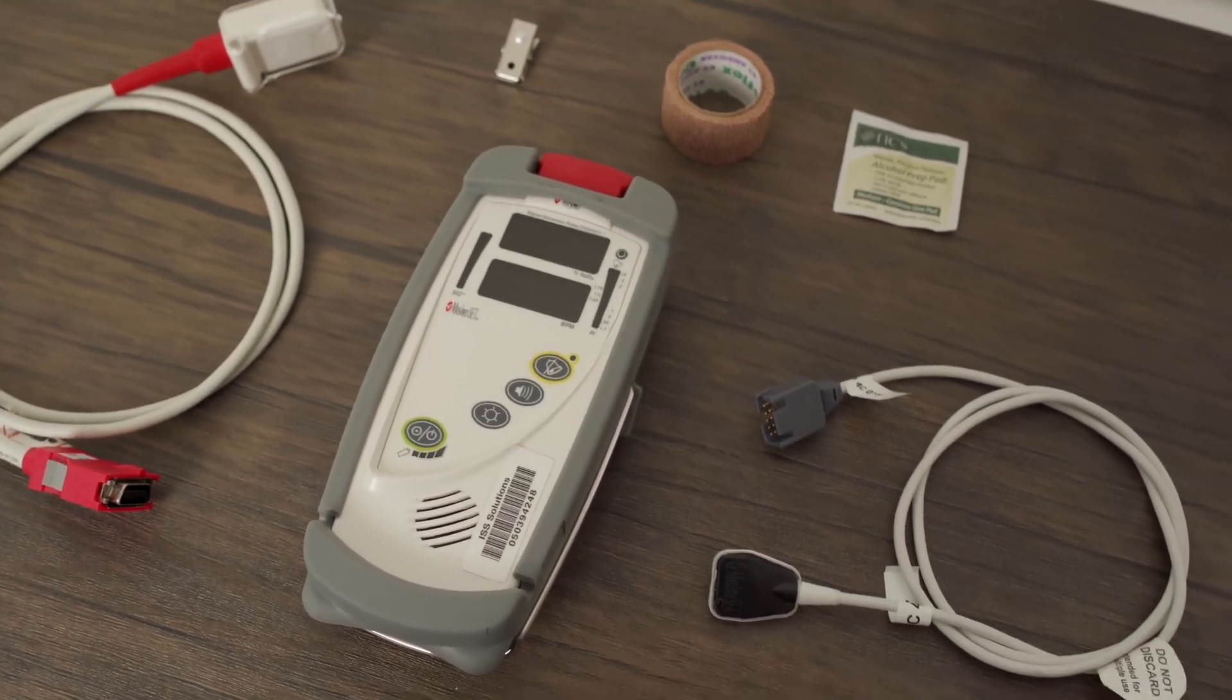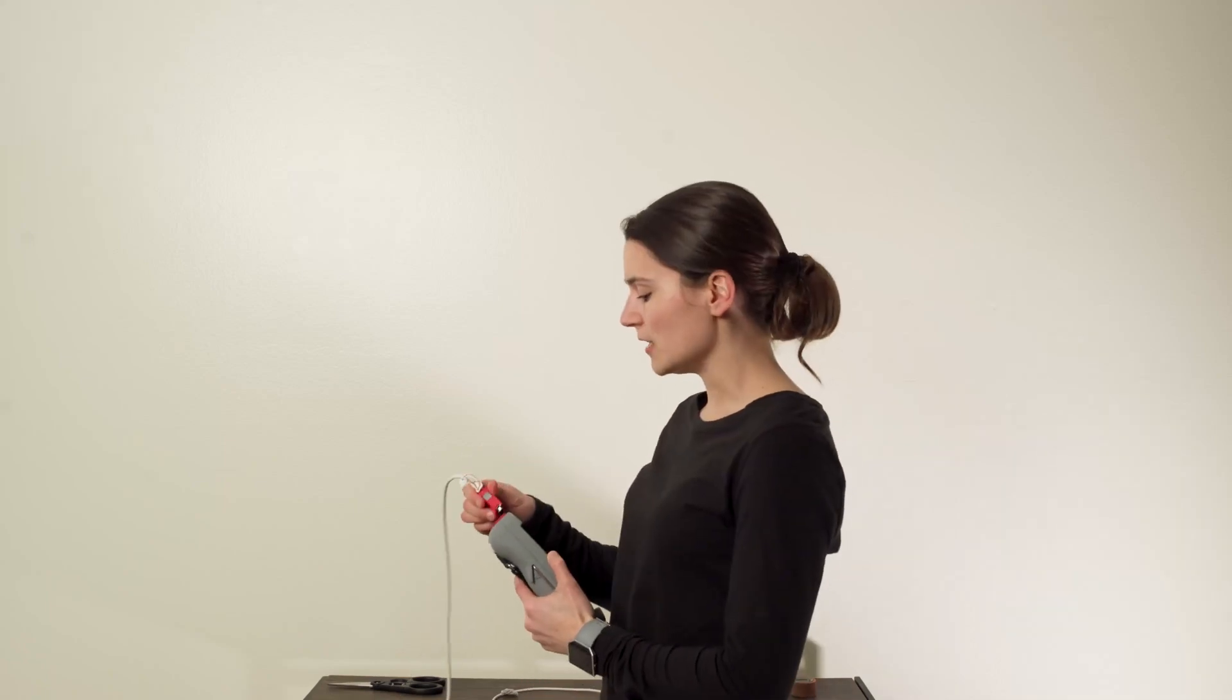First, I'll demonstrate how to set up the equipment. You'll grab the pulse oximeter and plug the cord directly into the top.